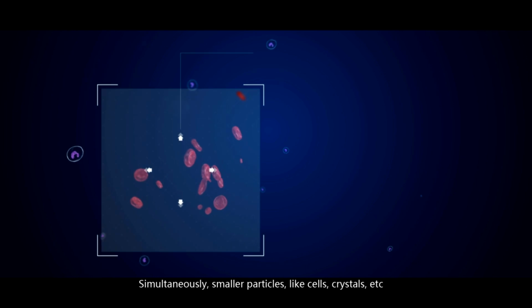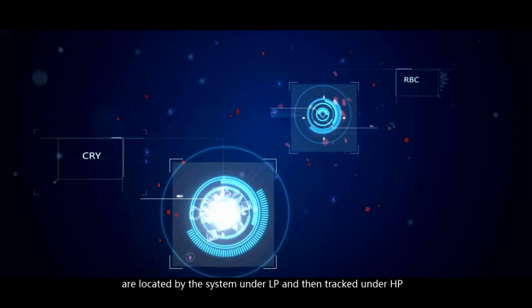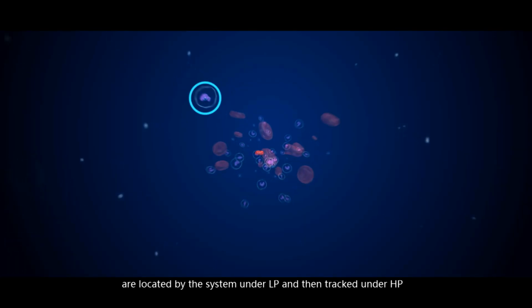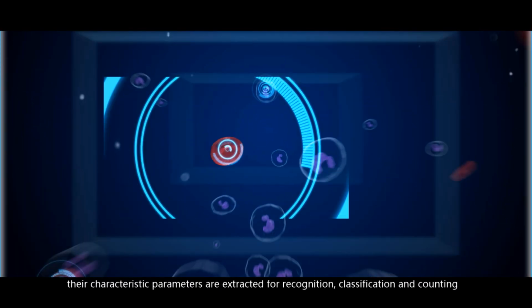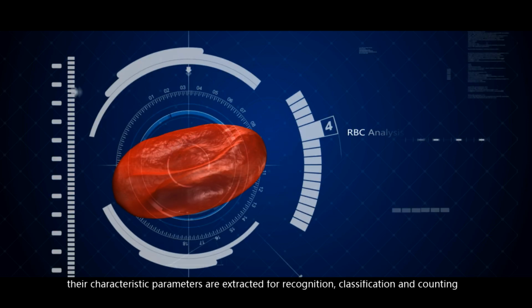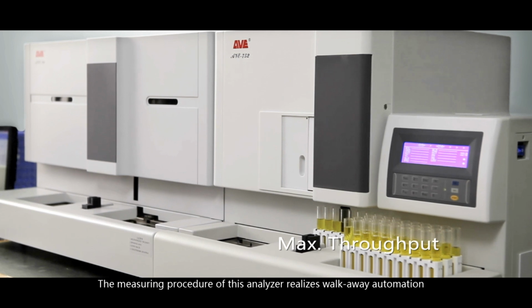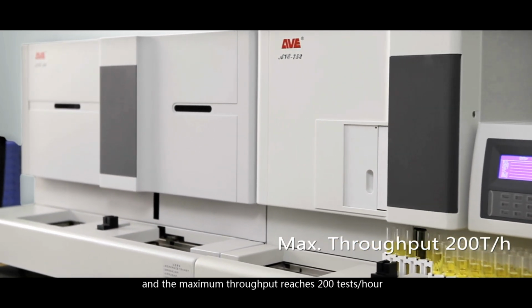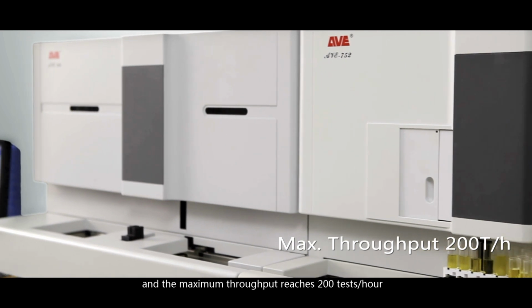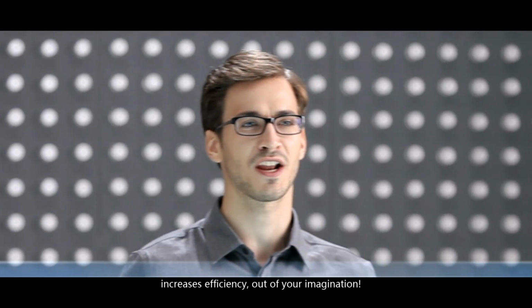Simultaneously, smaller particles like cells, crystals, etc. are located by the system under low power and then tracked under high power, and after being magnified, their characteristic parameters are extracted for recognition, classification, and counting. The measuring procedure of this analyzer realizes walk-away automation, and the maximum throughput of it reaches 200 tests an hour. It reduces labor force, increases efficiency out of your imagination.